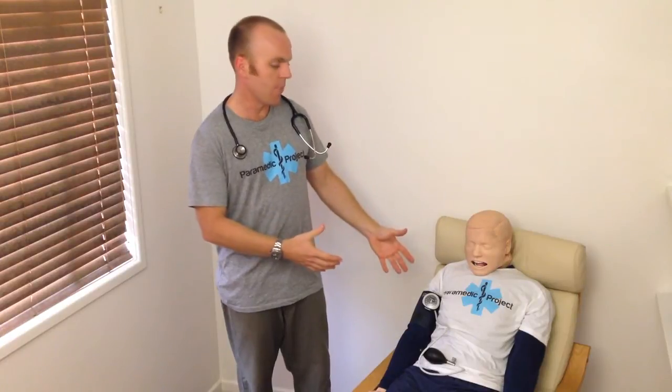It's really important to master the art of a manual blood pressure, and like any other skill this requires practice. They say learning to surf you need to catch a thousand waves. Learning a musical instrument requires so many hours of practice.